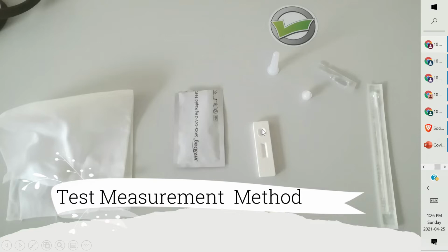This is the saliva antigen area where you need to pour the drop of saliva, and this is the indicator which will indicate the test result, and this one is, you can say, the pack.